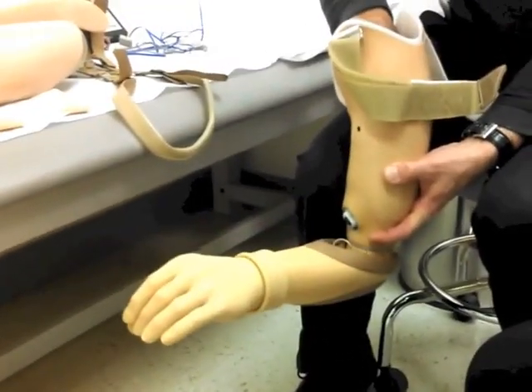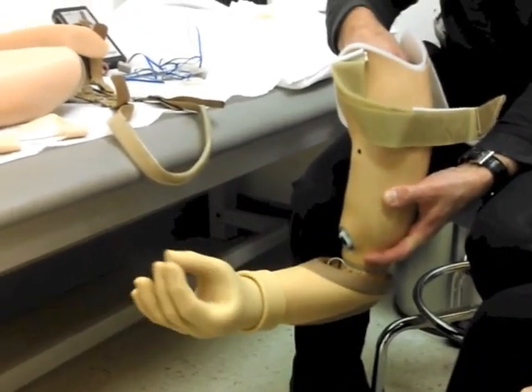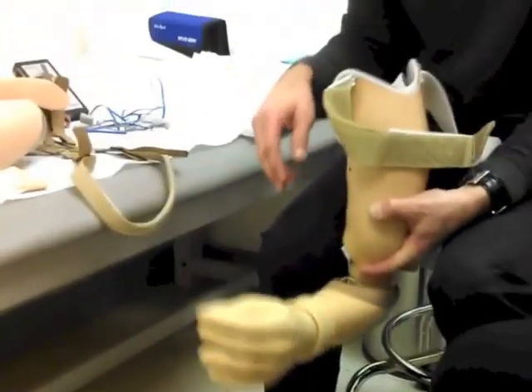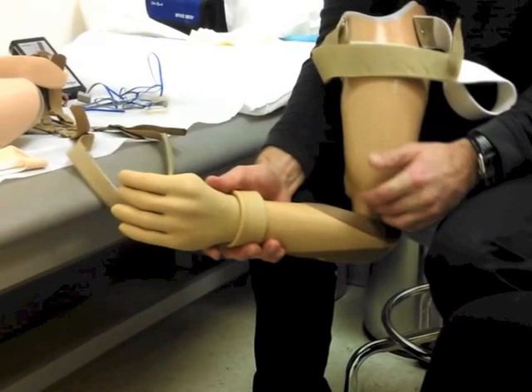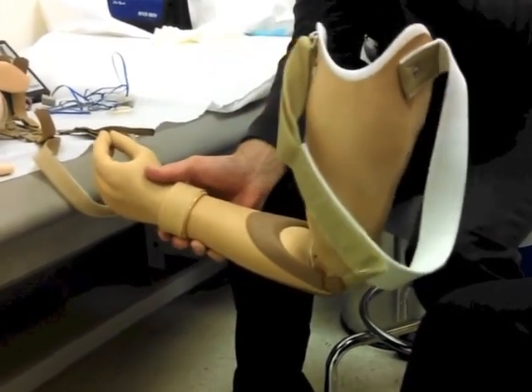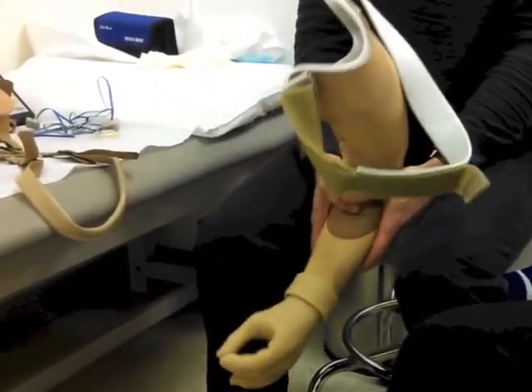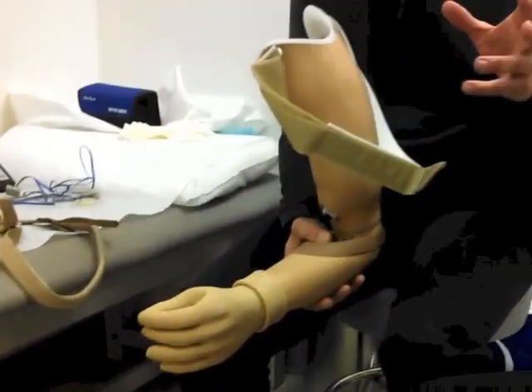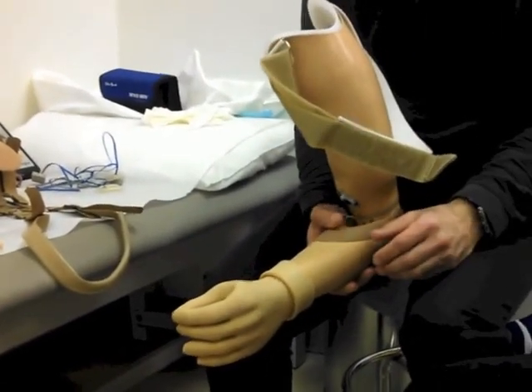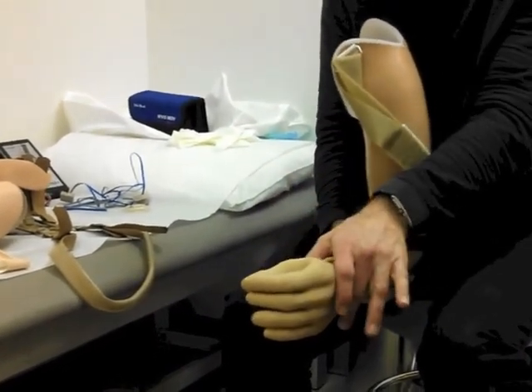I'm just picturing myself with that thing on and trying to run — and naturally it could be a problem. But this has a wrist rotator in it. The back muscle will let it go one way, and the front muscle will let it go another way. So this basically has three functions: the hand, the wrist, and the elbow. Each time you fire both muscles together it'll cycle through hand, wrist, and elbow. If you run or bend forward and happen to fire the muscle and it's not set just right, it can inadvertently come up — so you have to be careful. This type is heavier, and they don't want you driving with it powered on. Turn the power off if you happen to be in a vehicle.